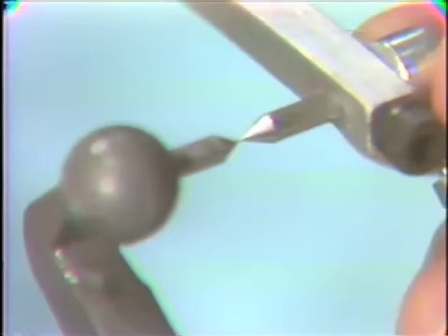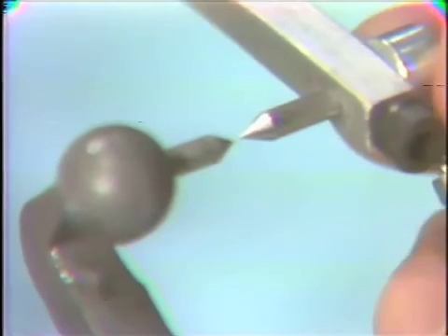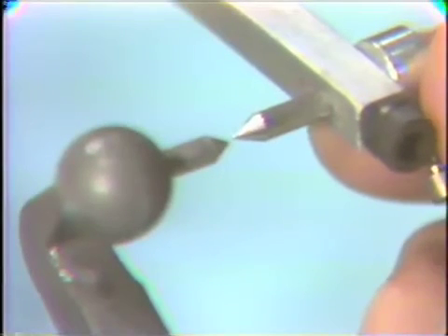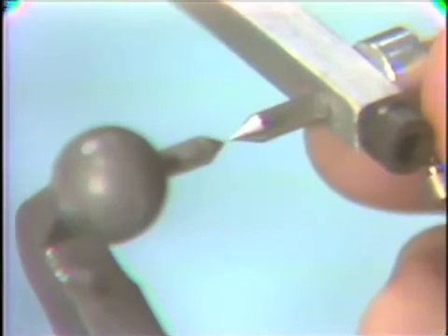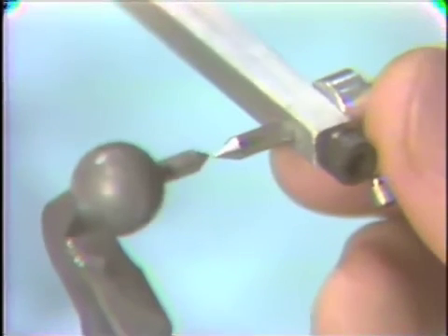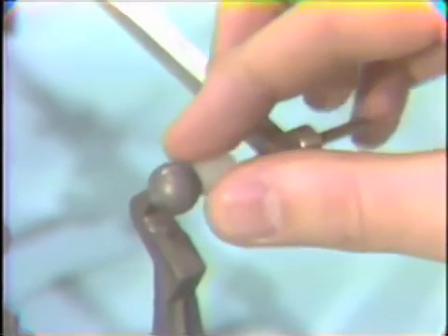in our intercondylar distance. Now, one thing that should be mentioned here, this is another one of the drawbacks of this articulator, is that it doesn't allow for asymmetrical intercondylar distance settings. Both condyles will be set symmetrically or centered from the midline. So if a patient has symmetrical intercondylar distance from the midline, this articulator will be very close. The more asymmetric the patient is in relation to the midline, the more discrepancy will be built into this articulator.